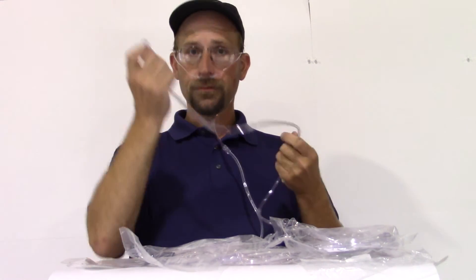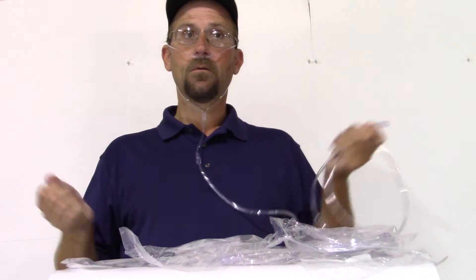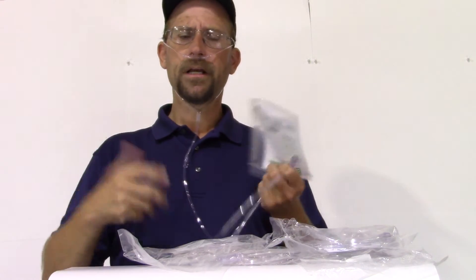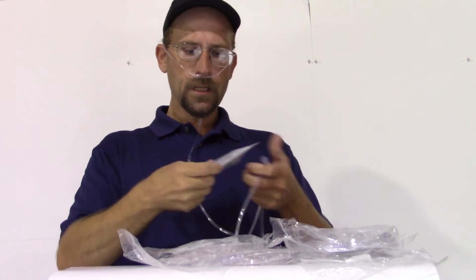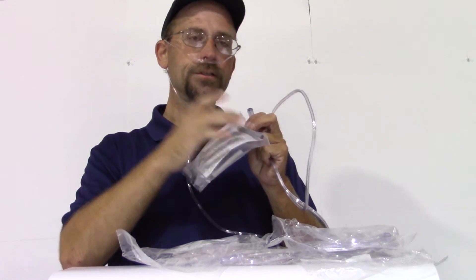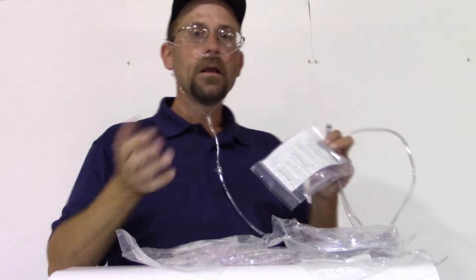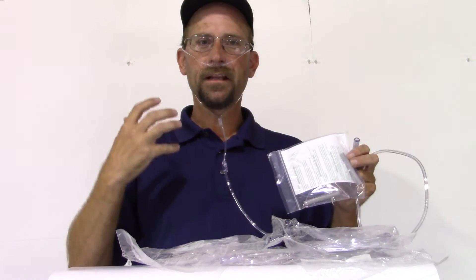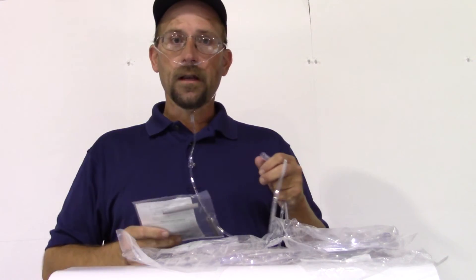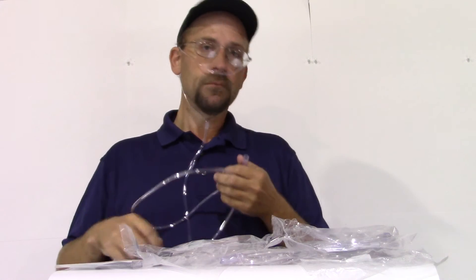This end here will actually go into a regulator for a bottle, or into a connector that goes into a portability base, liquid base, or an oxygen concentrator. This is something I recommend for people — usually 24-hour-a-day patients — who get chafing behind the ears. This is foam tubing that has a slit through the middle. You put it around the cannula tubing and slide it up behind your ear. It cushions your ear and prevents the rubbing. You can put some medical tape around it to keep it from moving. A lot of people who use oxygen 24 hours a day love these.